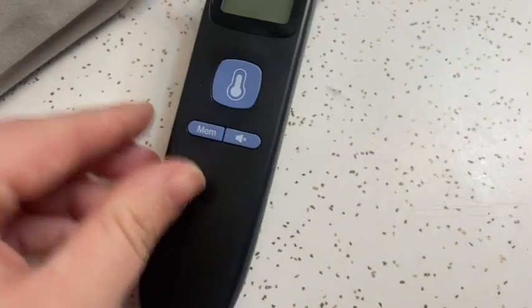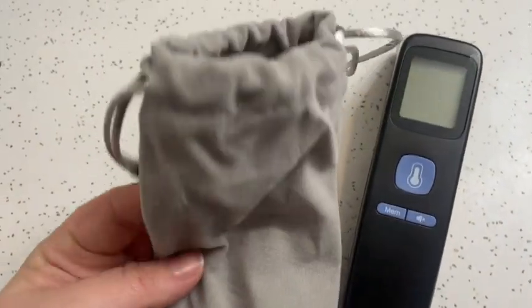I like this because you can turn the sound on and off, so this is a great one for checking on a sick kiddo. I can go in, press the button, and he has no idea I'm in there, no idea I'm checking his temperature. As you can see here, it has a temperature button — you put it up to your forehead, press the button, it reads your temperature.